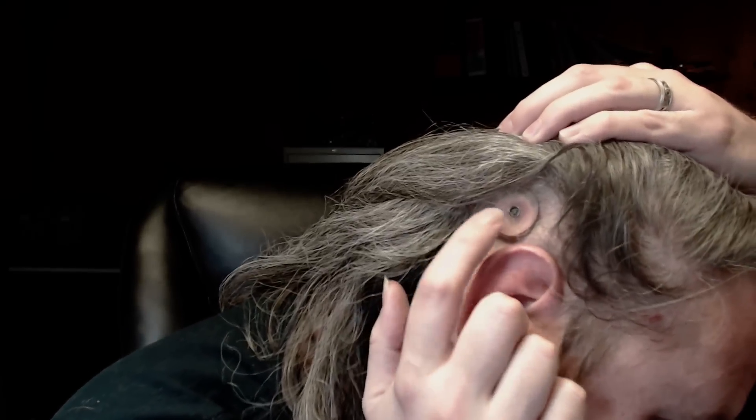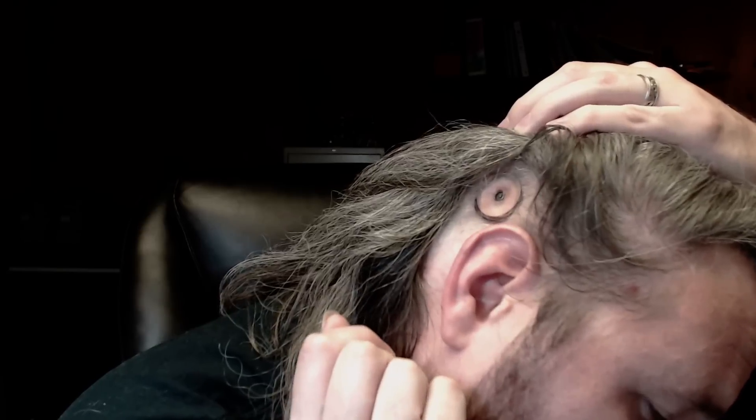They did clear away the subcutaneous tissue, so once we get this healing patch removed, there'll actually be a dent in my head around this little metal implant. So they lifted that flap up, took out the subcutaneous tissue, drilled the pilot hole into my skull, and then screwed this titanium implant about four millimeters deep into my skull. And I have to wait basically 90 days for that to heal enough to actually put the sound processor onto the implant and be able to fully use it.